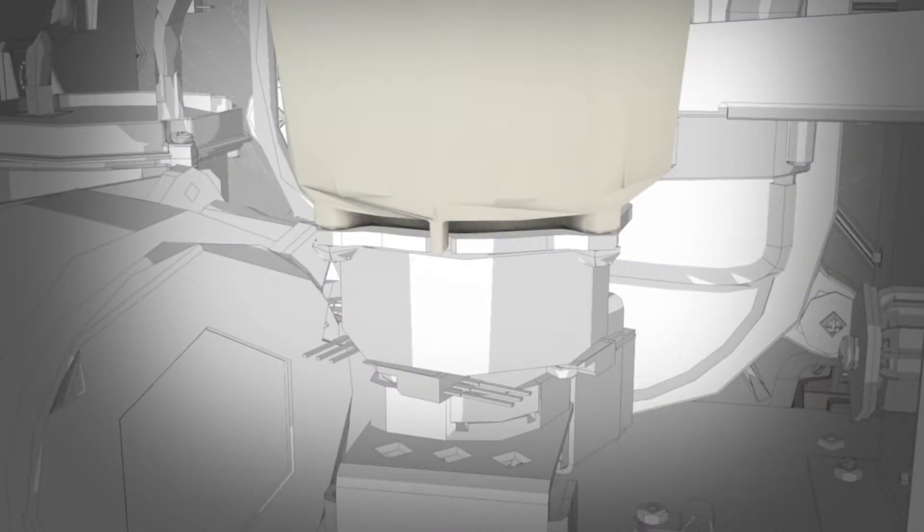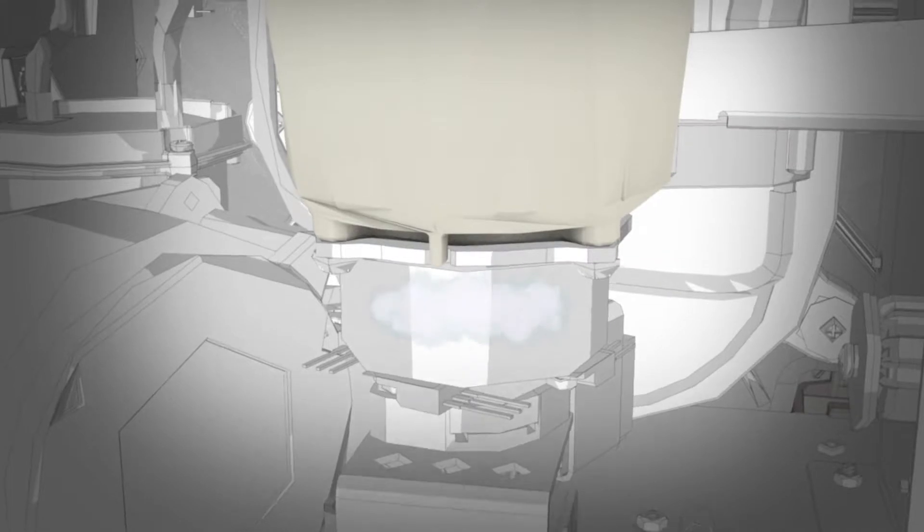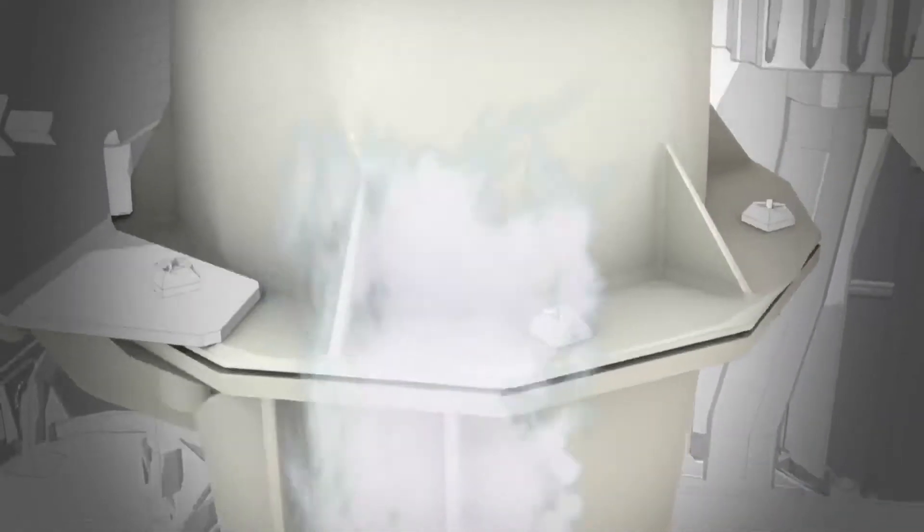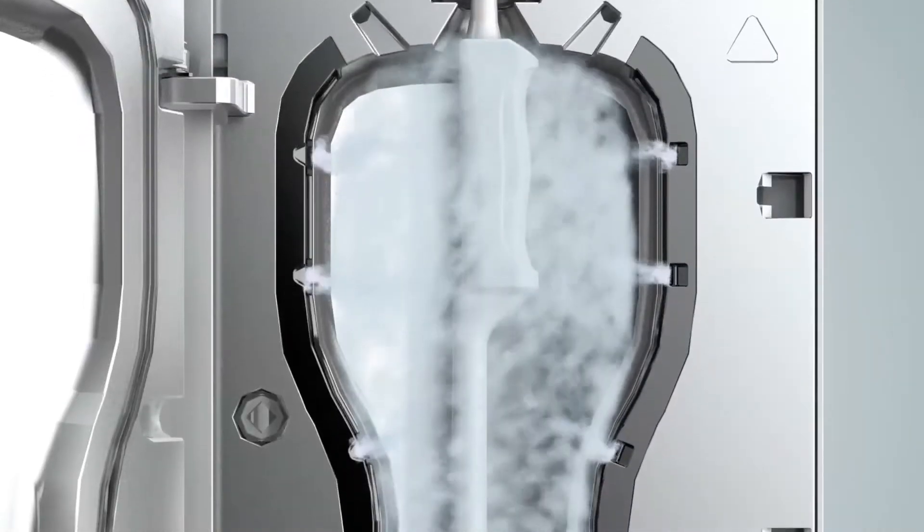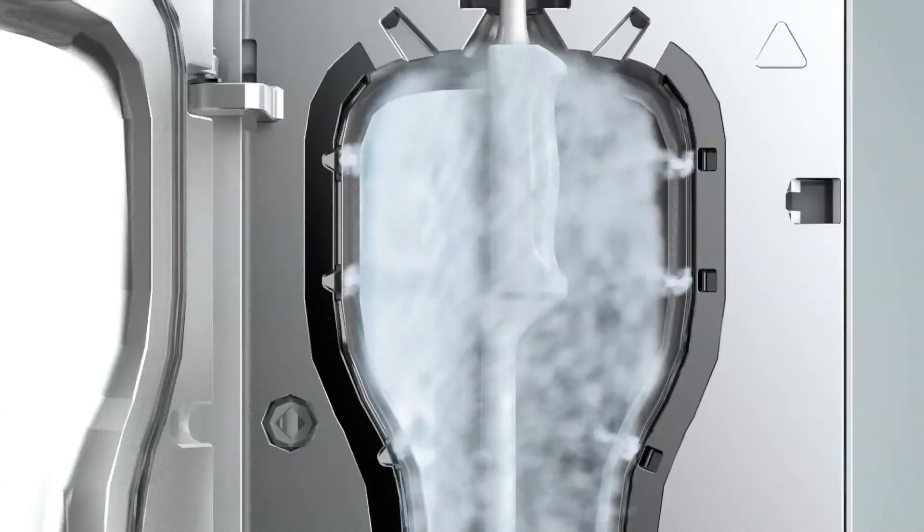Ultrasonic vibration in the nebulizer generates a controlled quantity of ultrafine hydrogen peroxide mist. The mist swirls up inside the device and enters the decontamination chamber via side ports, gently covering the entire surface.